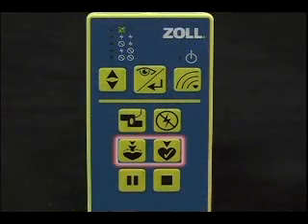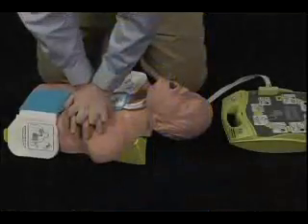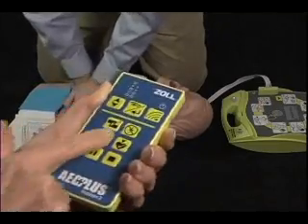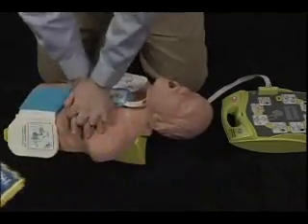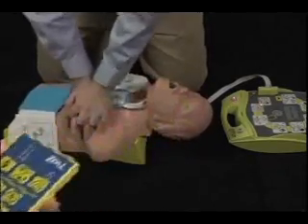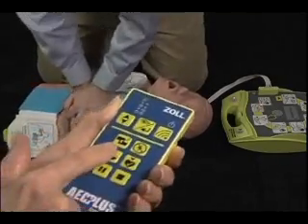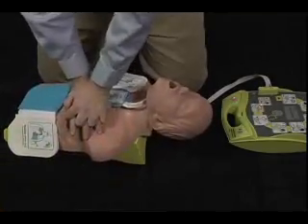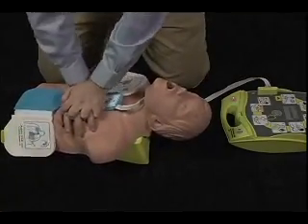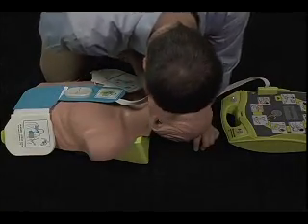The 2 middle buttons can only be used during the CPR interval while the Trainer 2 unit is beeping in a scenario with the CPR metronome on. Push the left button once to make the Trainer 2 say, Push harder. Push the right button once to make the Trainer 2 say, Good compressions. Both middle buttons can be used at any time during the CPR interval. But at other times, these buttons are invalid and their transmissions will be rejected by the Trainer 2 unit.